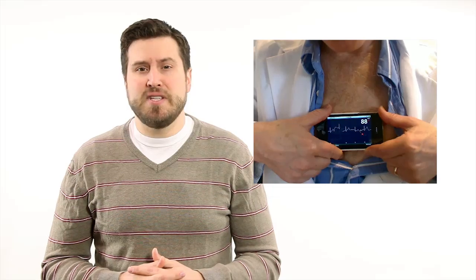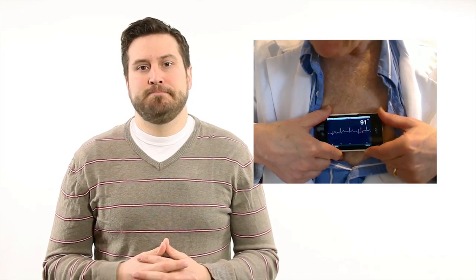The Alive ECG app isn't available for sale yet. It still has to be tested in clinical trials and approved as a medical device by the FDA, which as anyone who has gone through the process knows, should be done around the time pigs fly and the Cubs win the World Series. It'll be on the iPhone X that you can control with your mind.